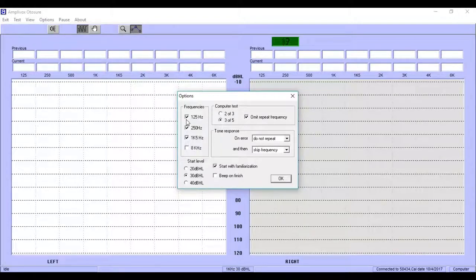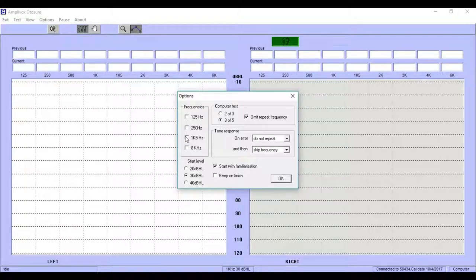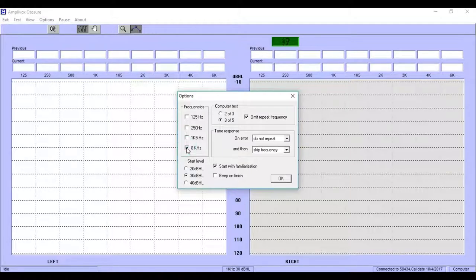We deactivate 125 and 250 Hz as well as 1.5 kHz. Some people do test 250 Hz as it is their personal preference to include this test frequency. We recommend including 8 kHz in the test sequence as 8 kHz will help you differentiate noise-induced hearing loss from presbycusis.